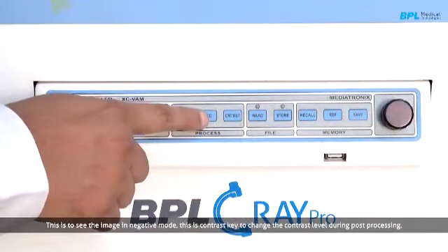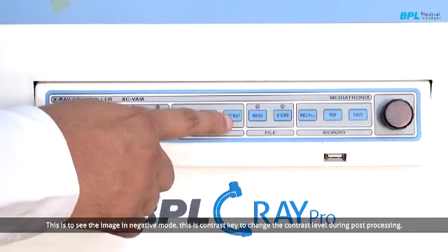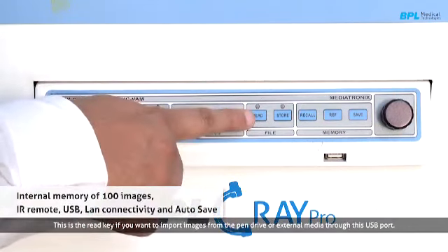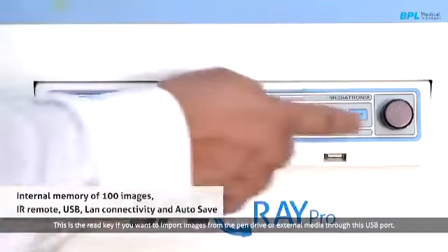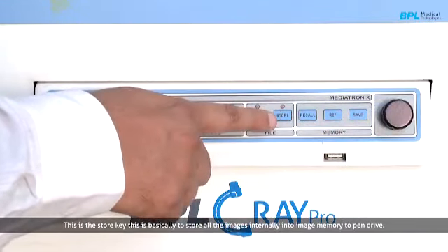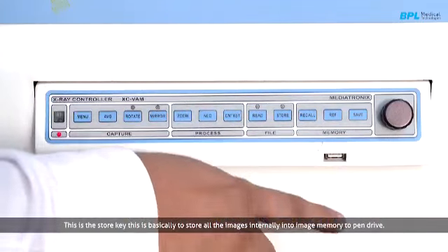This is to see the image in negative mode. This is the contrast key to change the contrast level during post processing. This is the read key if you want to import images from a pen drive or external media through this USB port. This is the store key. The store key is basically to store all the images which are stored internally in image memory to the pen drive.